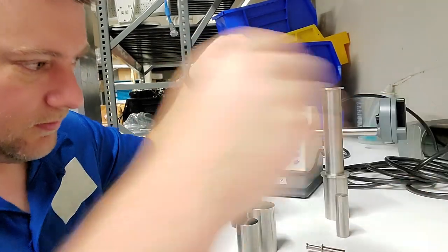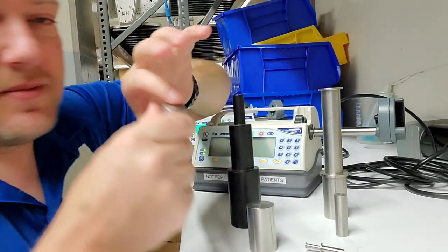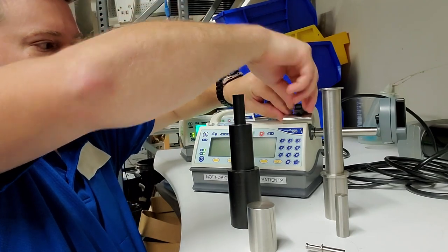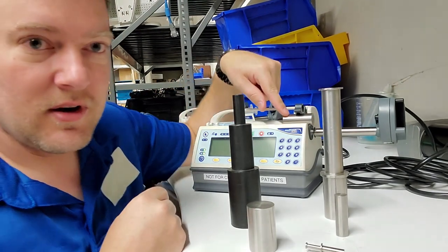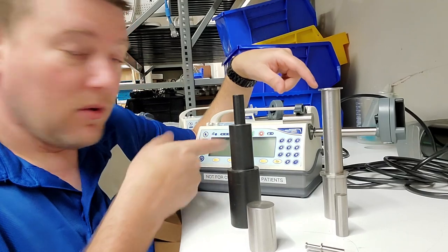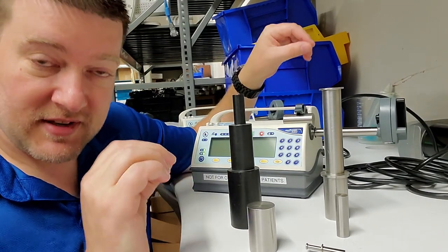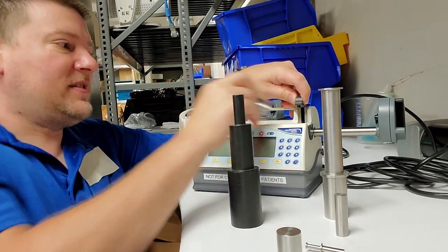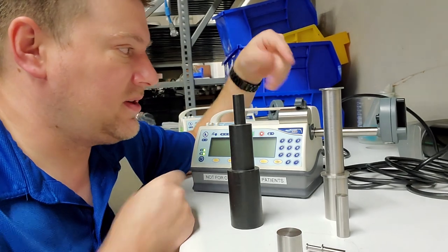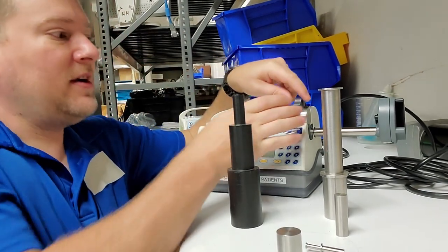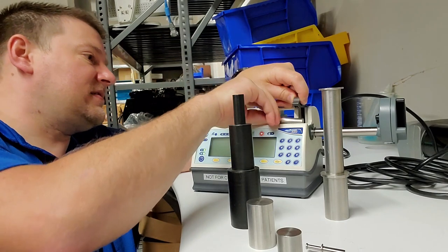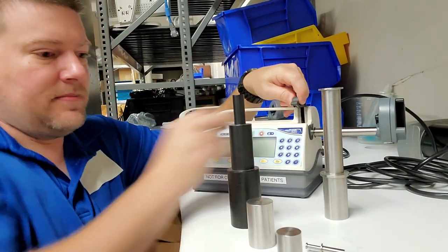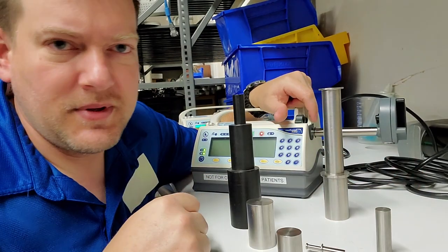When you load a syringe, it knows the calibrated value for that syringe. Like this one here is a 30ml BD syringe. We do calibrations based on these set sizes. When doing calibration, we lift it up, insert the blank, and it sets the resistive value for that size and migrates to a different size. We let it normalize, then move to yet a different size.